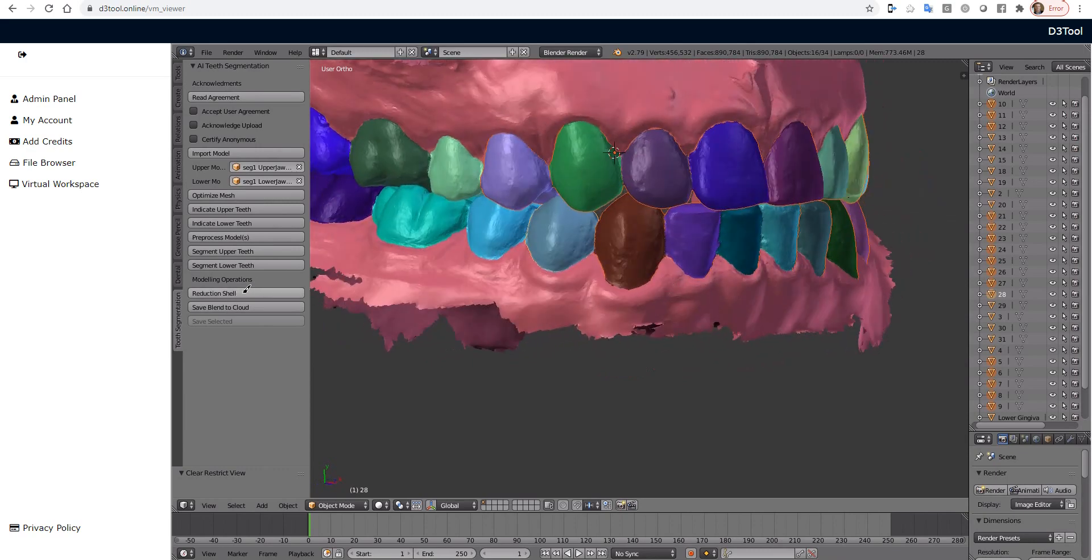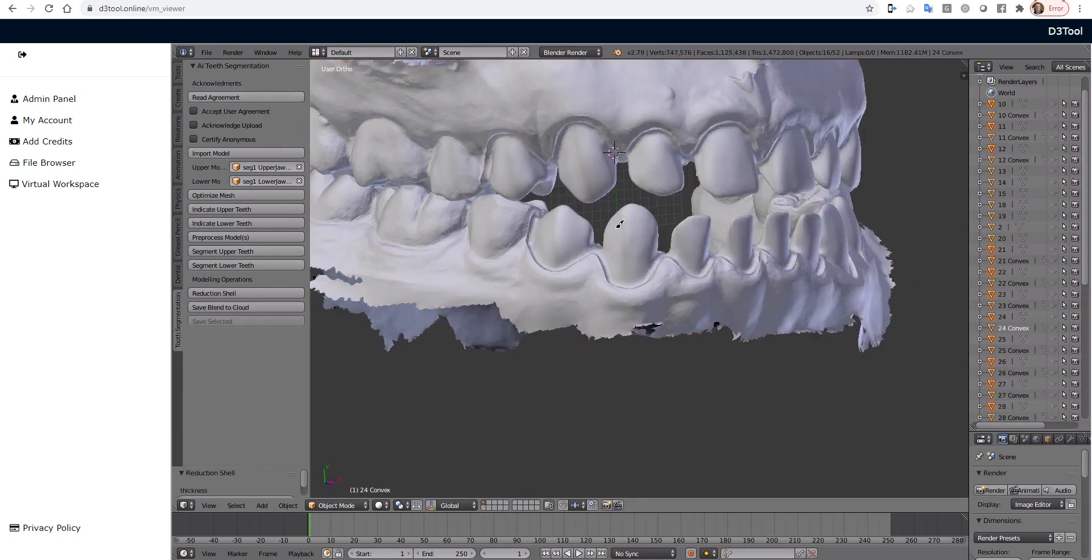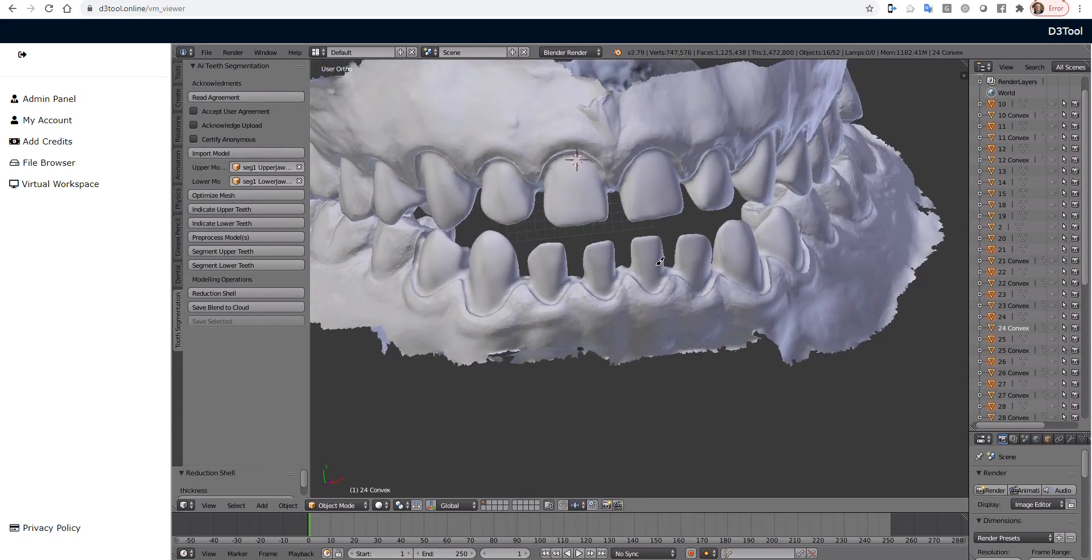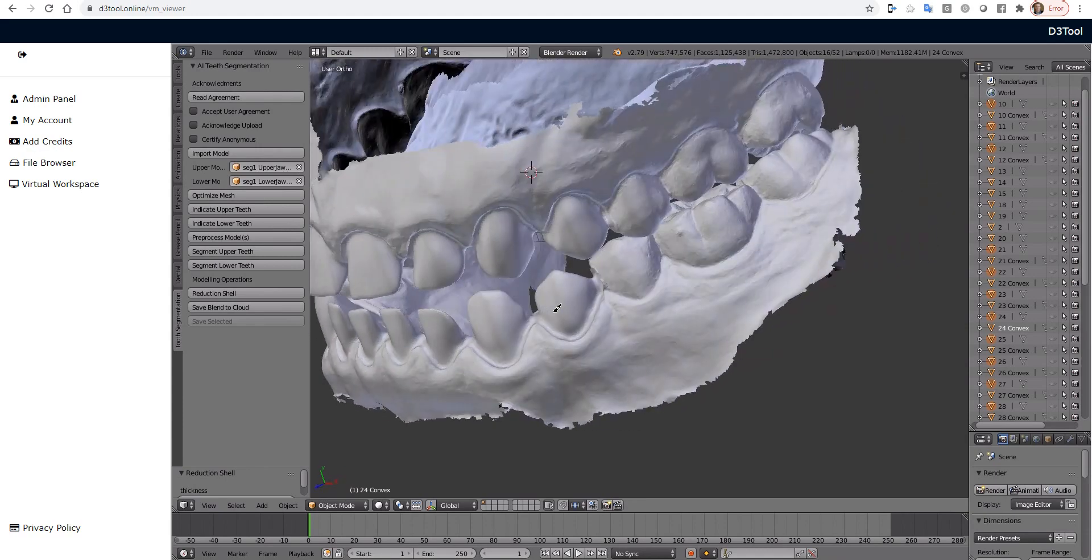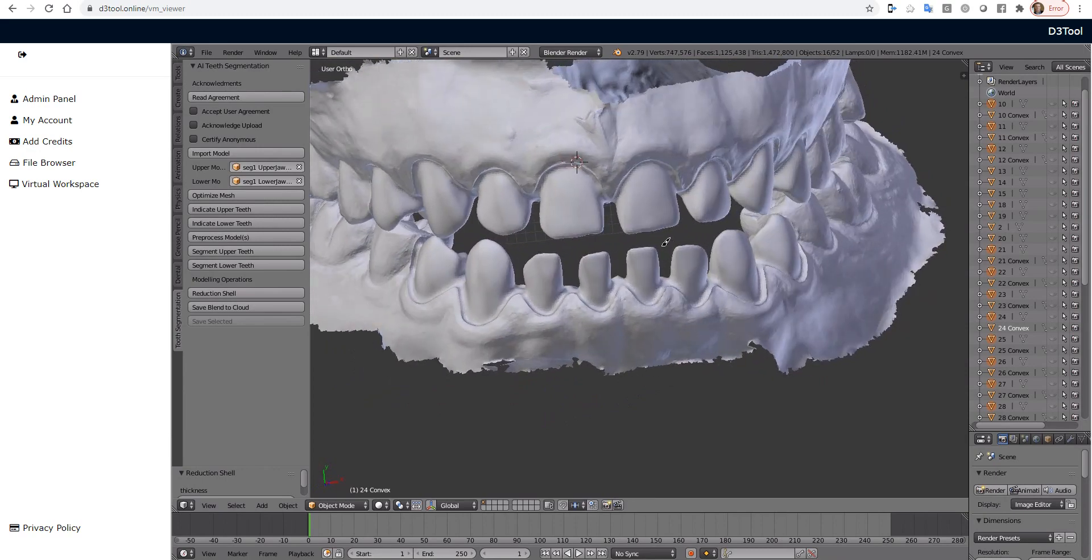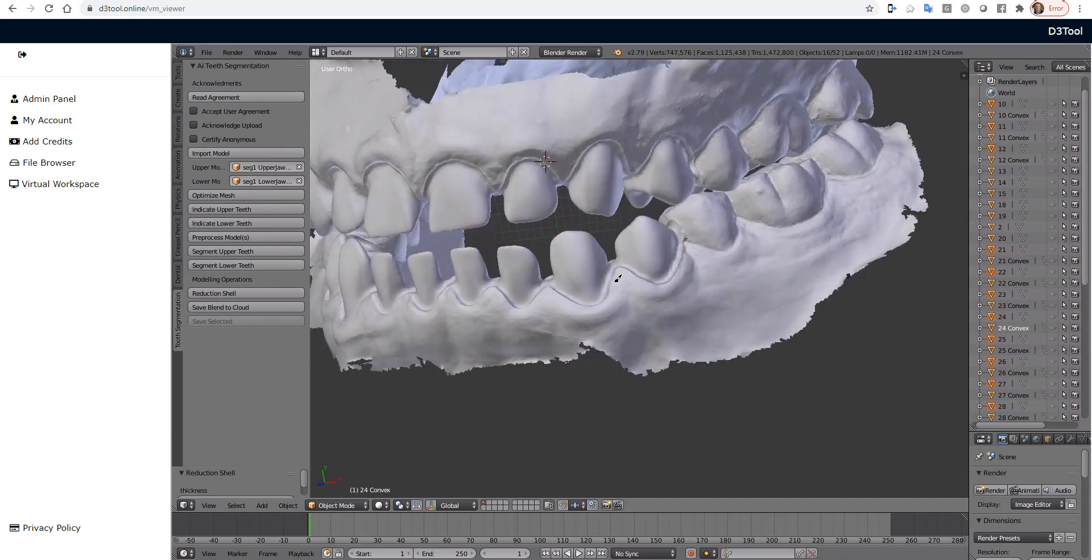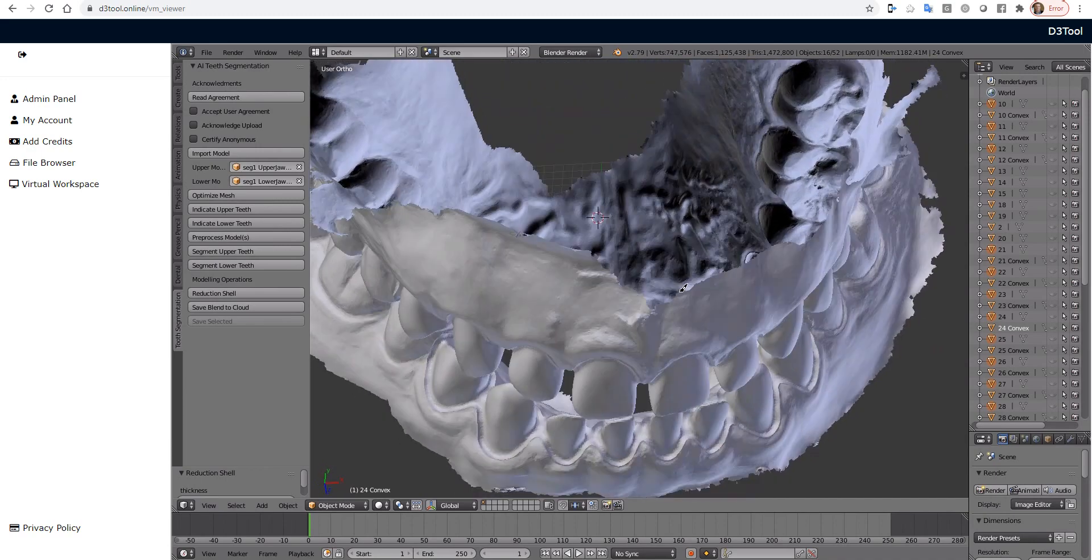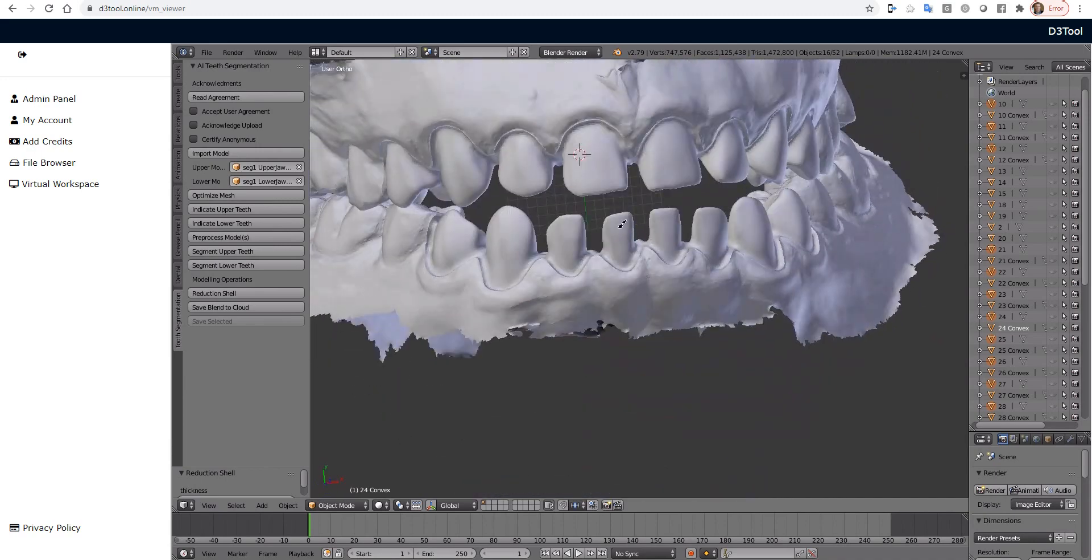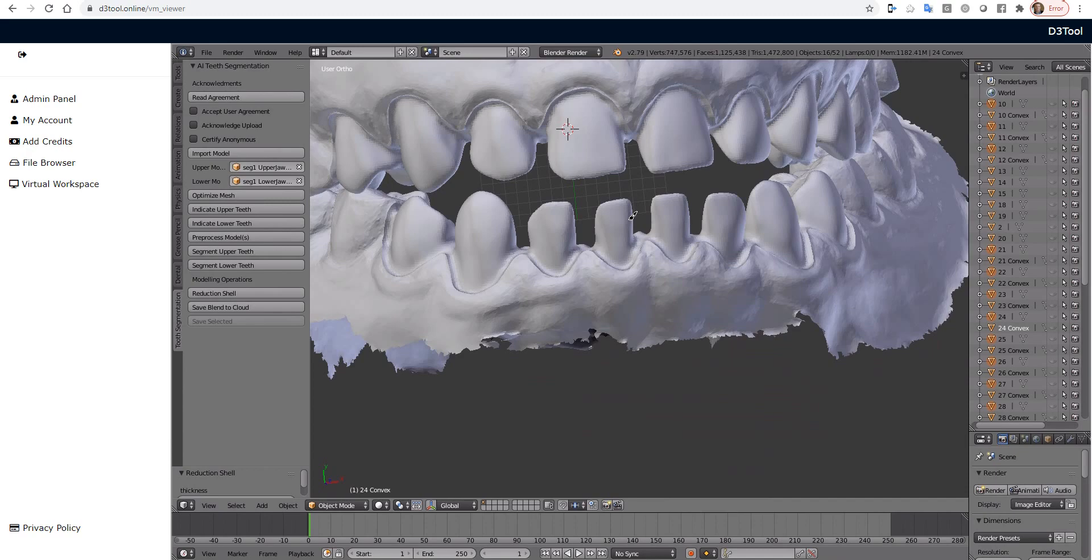And now what I'm going to do is press Reduction Shell. And we'll take 3 quarters of a millimeter off. And what this is going to do is actually create a solid tooth for every tooth we have selected and reduce the cast as if it had been prepped and even 3 quarters of a millimeter off. Okay, and there is the result. So here you can see, unlike a lot of other softwares that will do a reduction for you, this actually breaks the contact. So which can be good for making temporary shells or for doing diagnostic wax up. Having the tooth prepped digitally actually helps the software merge in whatever new teeth you're doing on top of it.